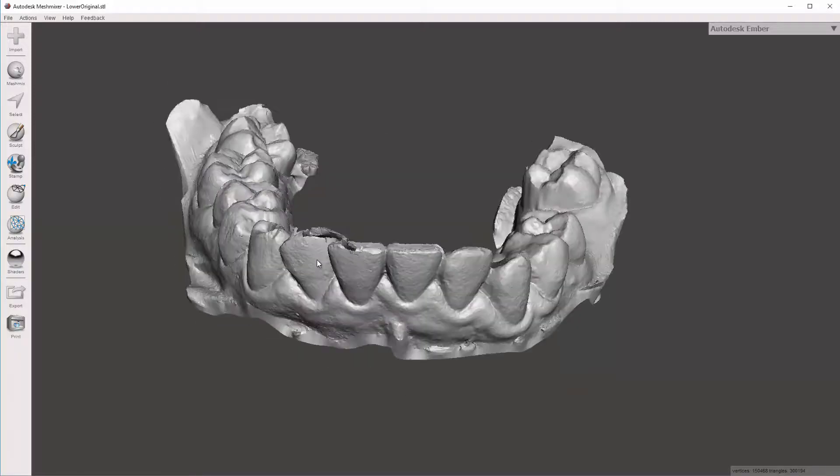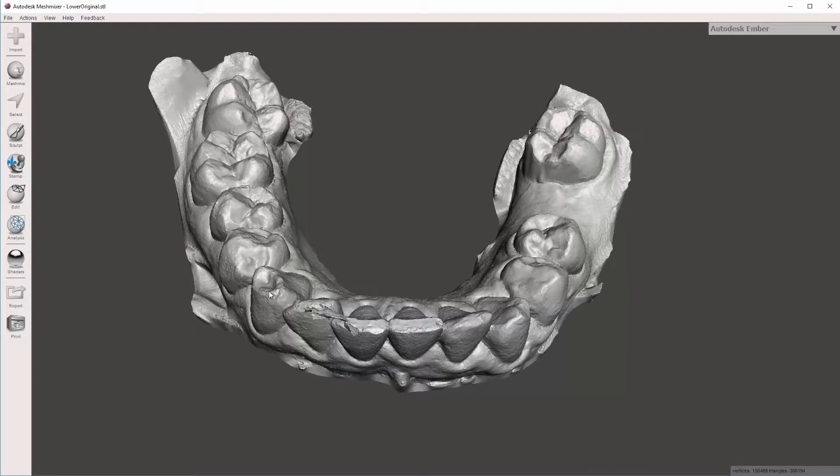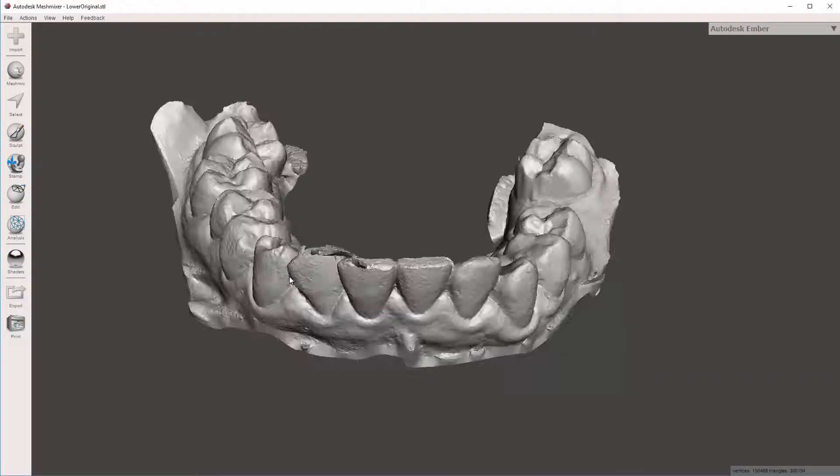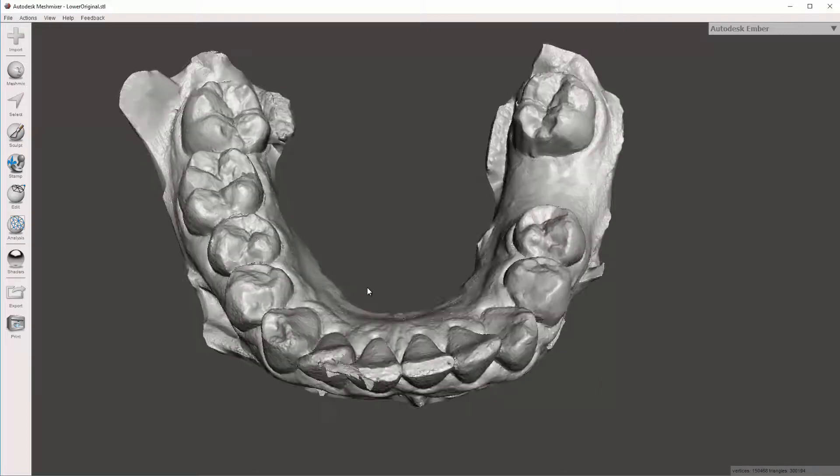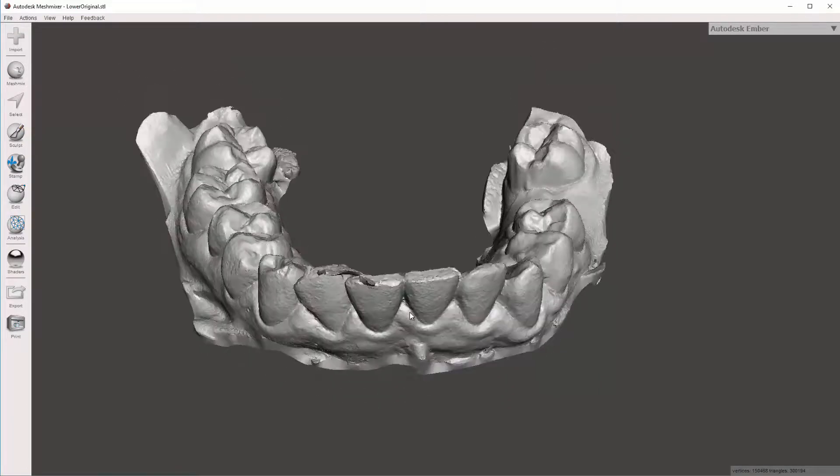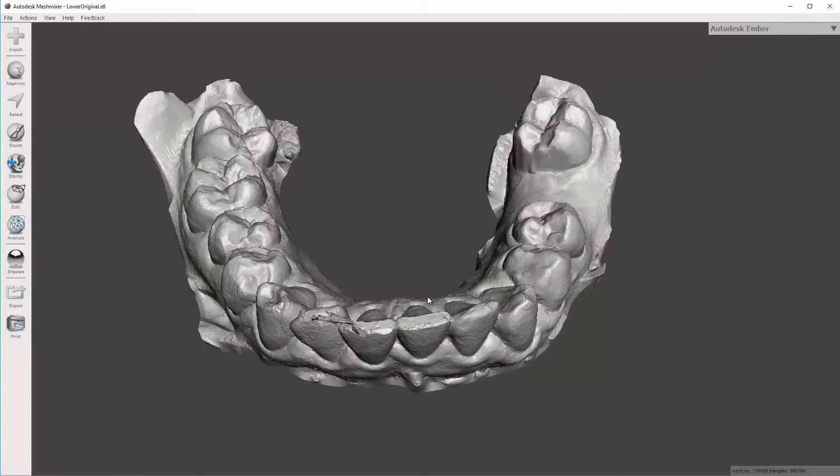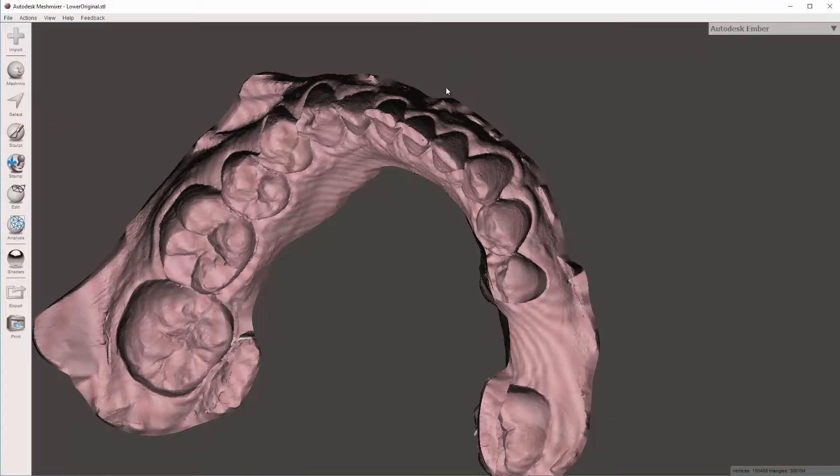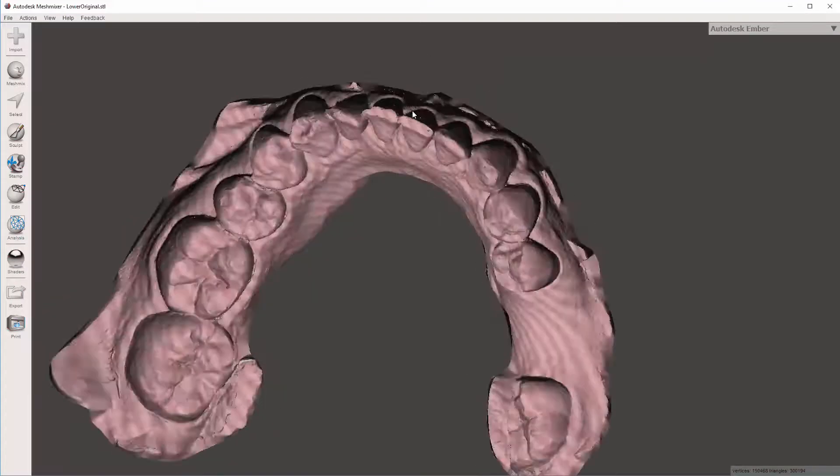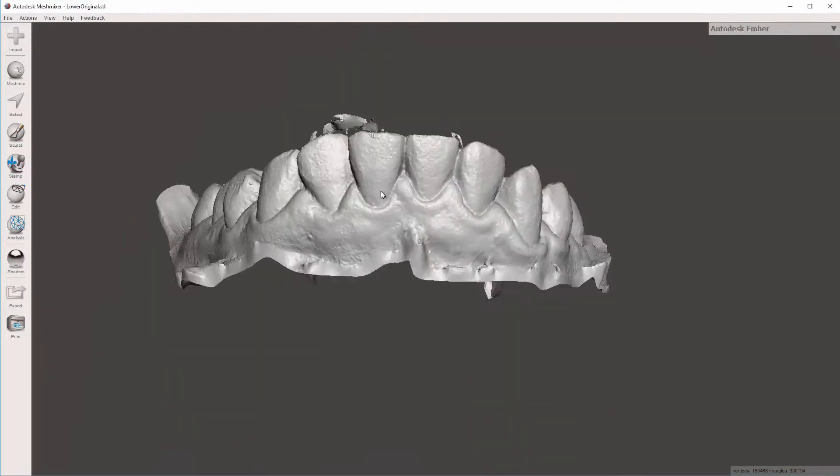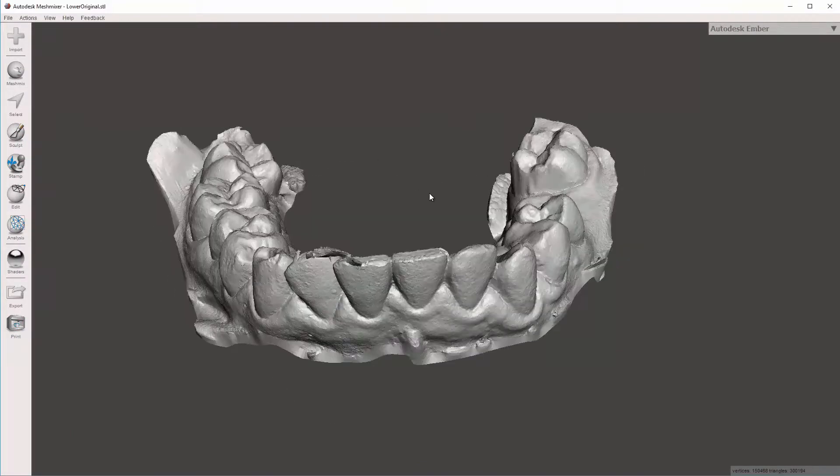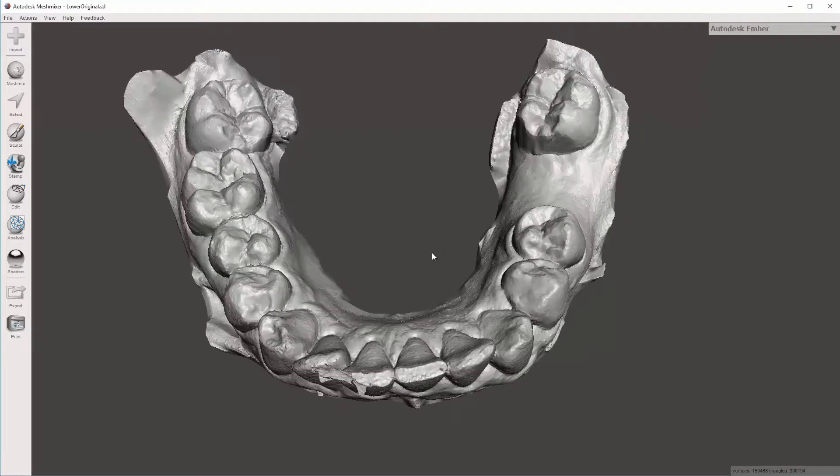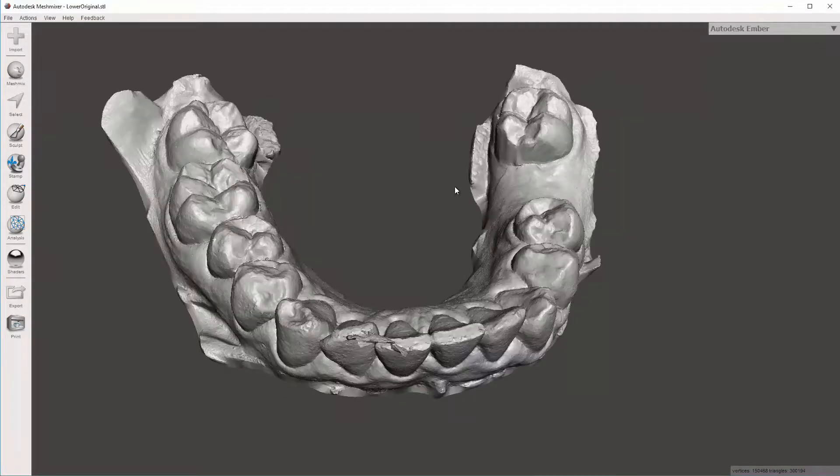In this set of videos, I'm going to walk over some of the steps I take to edit a model in preparation for various things. It could be for a surgical guide, it could be for a wax-up, or it could even be for orthodontic models, which is what this is going to be for a clear aligner case. So this is an optical scan. One of the reasons you can tell is because it's hollowed out on the inner side. It's pretty common with optical scans, and this was given to me by someone that used an iTero, an older model. And so we're going to go through some of the steps that I take to clean this up before I start using it for the actual planning.